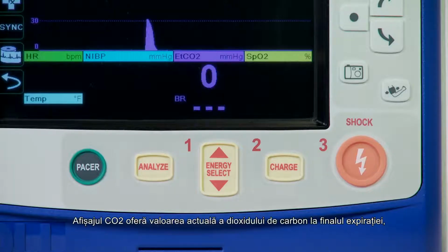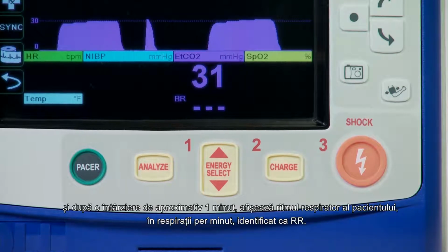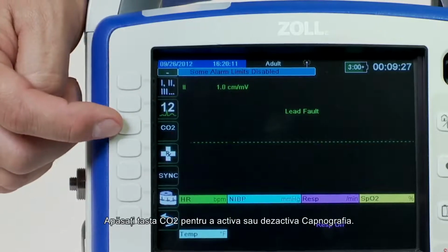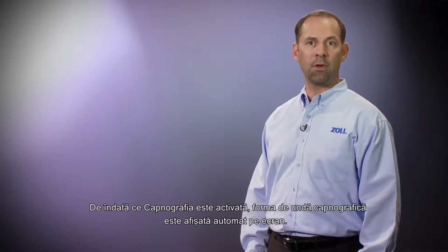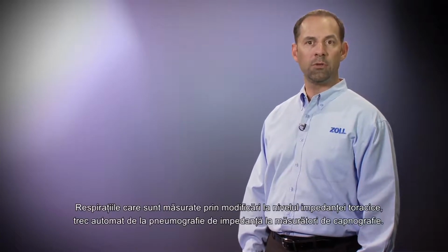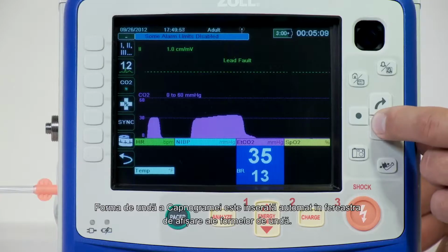The CO2 display gives the current end-tidal CO2 value, the concentration of carbon dioxide detected at the end of each exhalation, and after a delay of approximately 1 minute, the patient's respiration rate in breaths per minute, identified as BR. Press the CO2 key to activate or deactivate capnography. As soon as capnography is activated, the capnographic waveform automatically appears on the screen. Respirations, which are measured through changes in thoracic impedance, automatically transition from impedance pneumography to capnography measurement. The capnogram waveform is inserted automatically in the waveform display window.